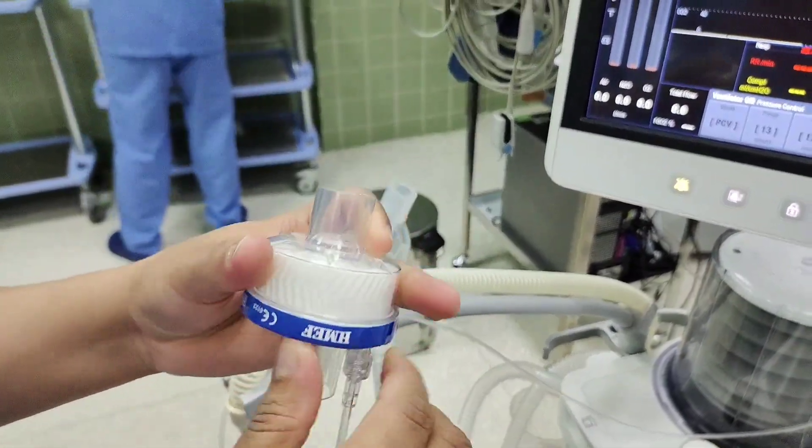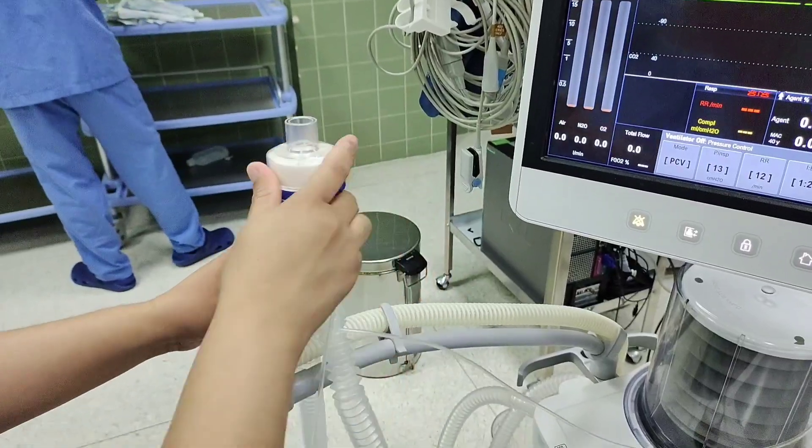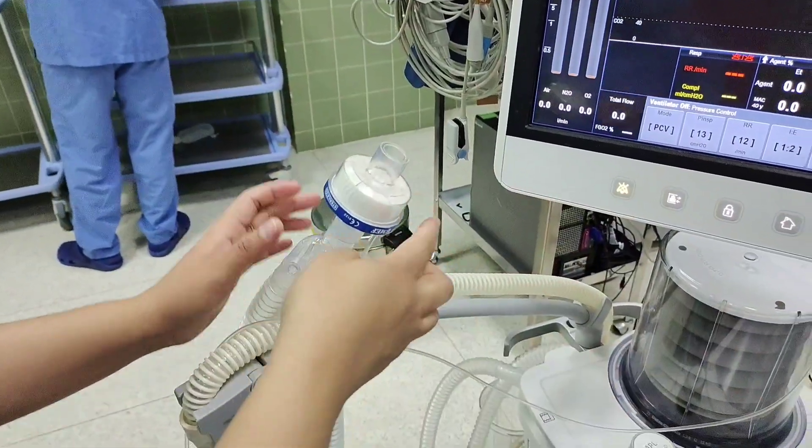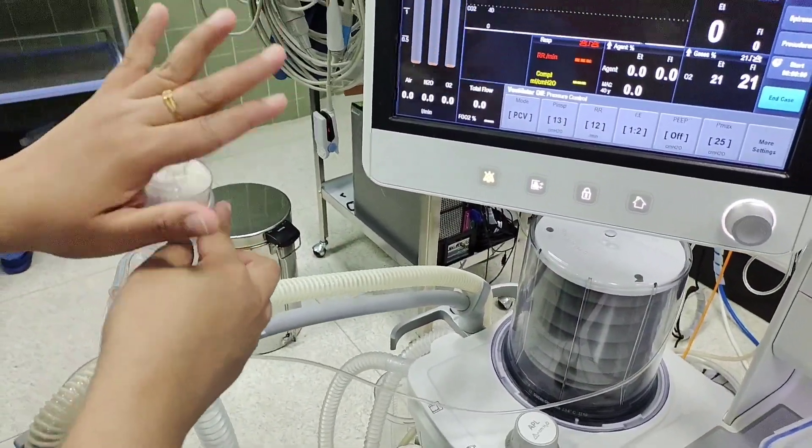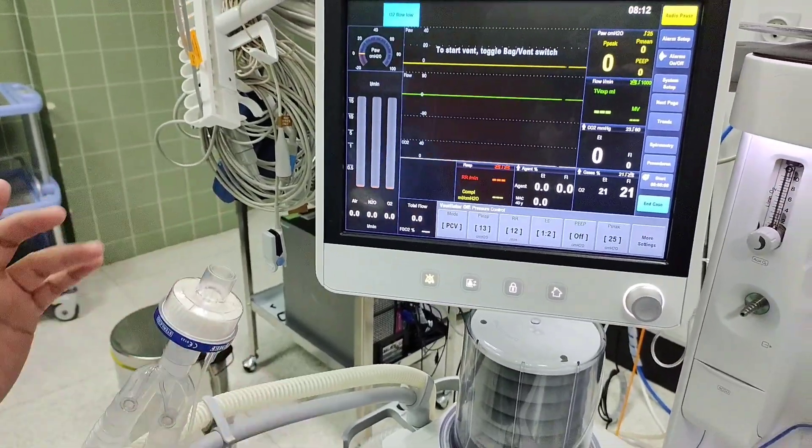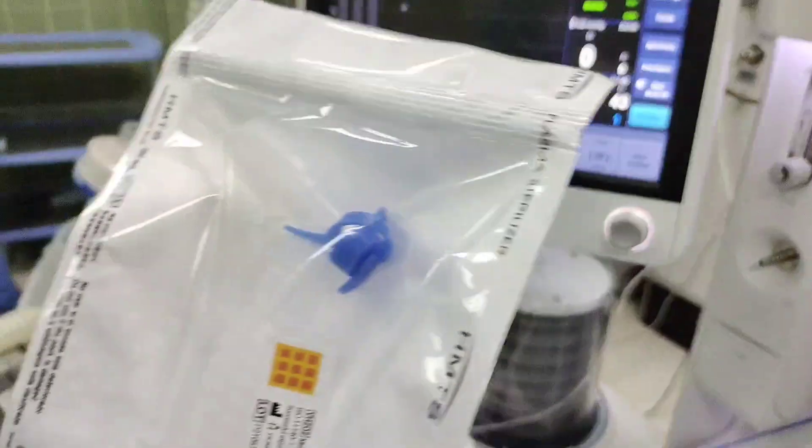This one will control any infection from the patient to one patient to another patient also, because we are removing this one every day, every time. After that, this is called catheter mount.